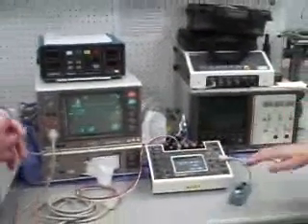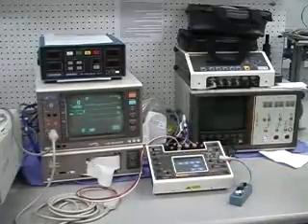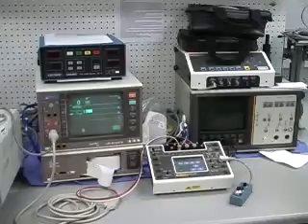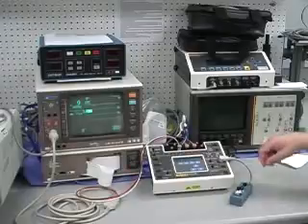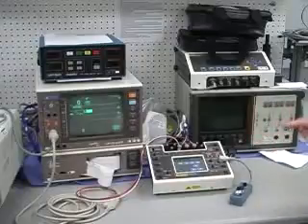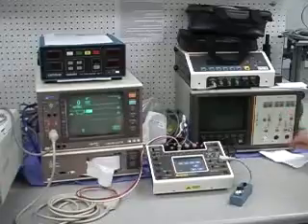Okay. And again, what this does is simulate a strain gauge type transducer that would be measuring fluid or the blood within the patient's heart itself or within its larger vessels. We provide the cables for the different brands, and I added the Datascope.